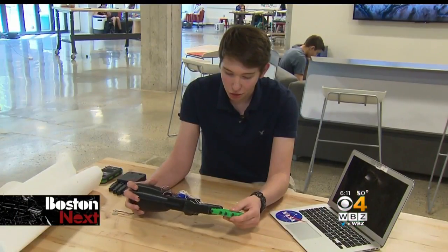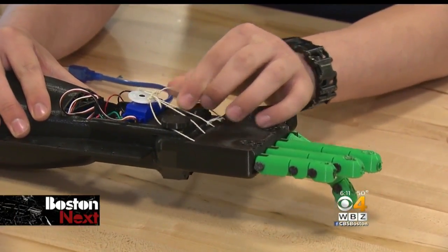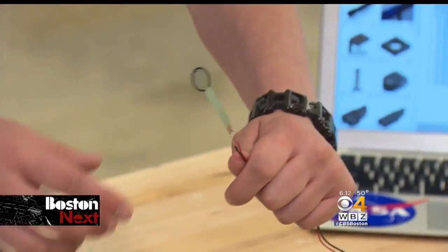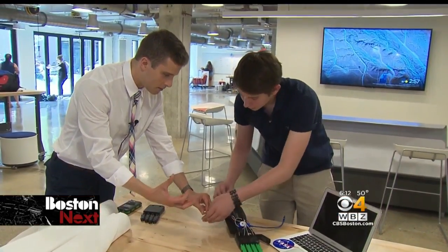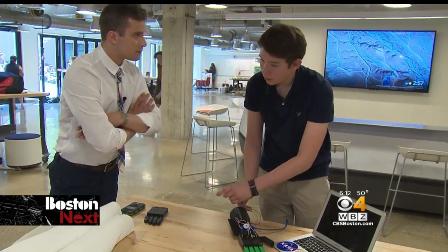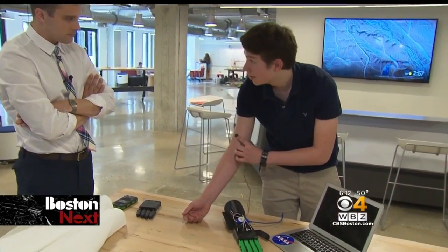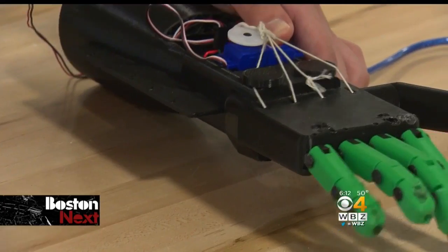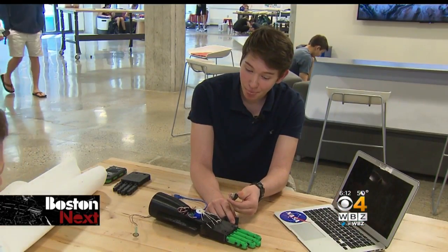Here's how it works. All of the fingers are jointed, and then the strings go from the very tips inside the hand. Those strings then connect to a servo motor, which connects to a sensor that rests on the person's bicep. The person would flex their arm, and that would touch off that process, and the fingers would grip. In the end, I envision this being attached to a strap on your arm. That gripping would allow disabled students to carry their school supplies or open doors.